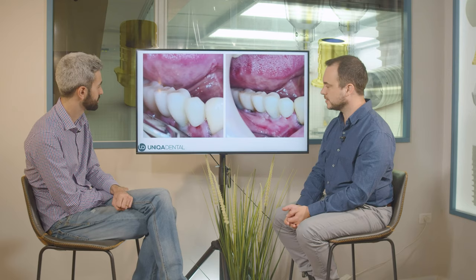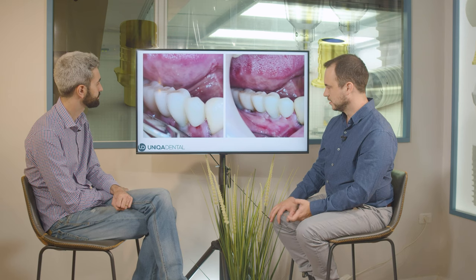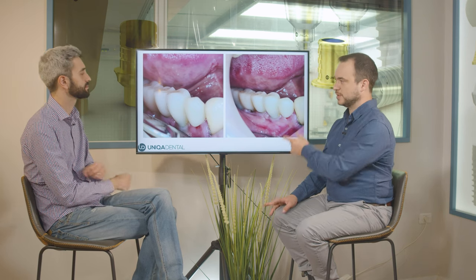This is the bridge mounted. We made the tooth that the patient lost a little bit smaller so it won't break when forces are applied. You don't want the occlusal surface of the cantilever too big, because when the patient eats, it will absorb as much pressure as it can and break. So you make the occlusal surface a little bit smaller, and this way the integrity of the construction will be much better.